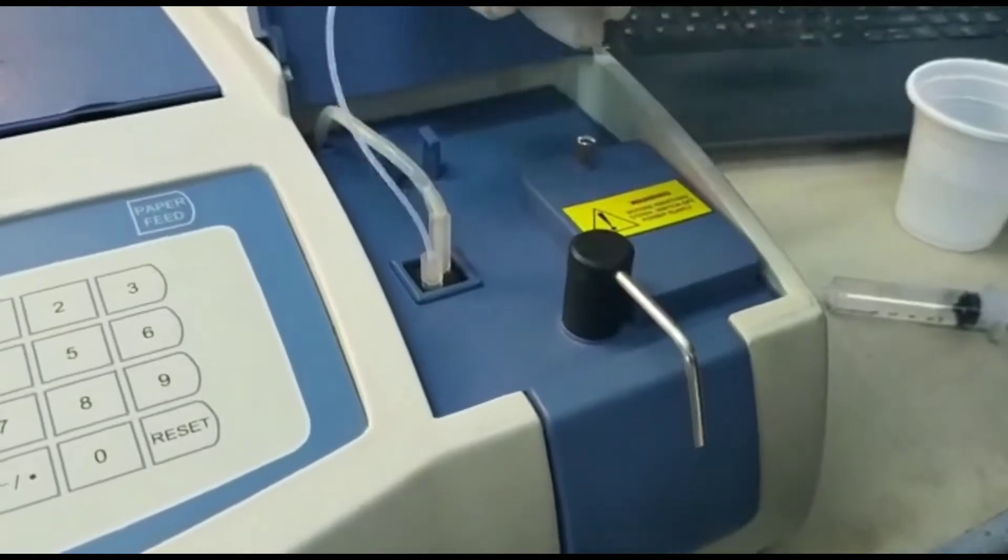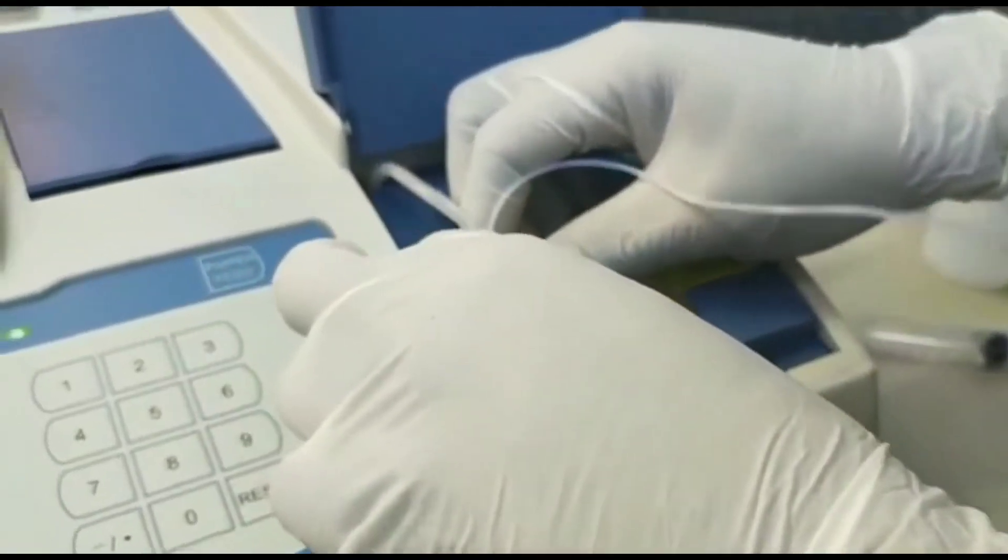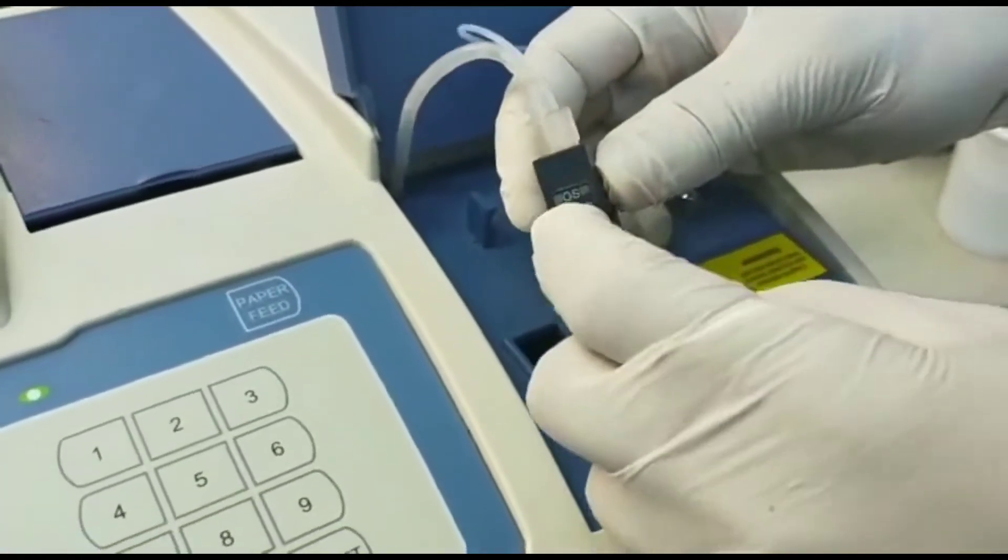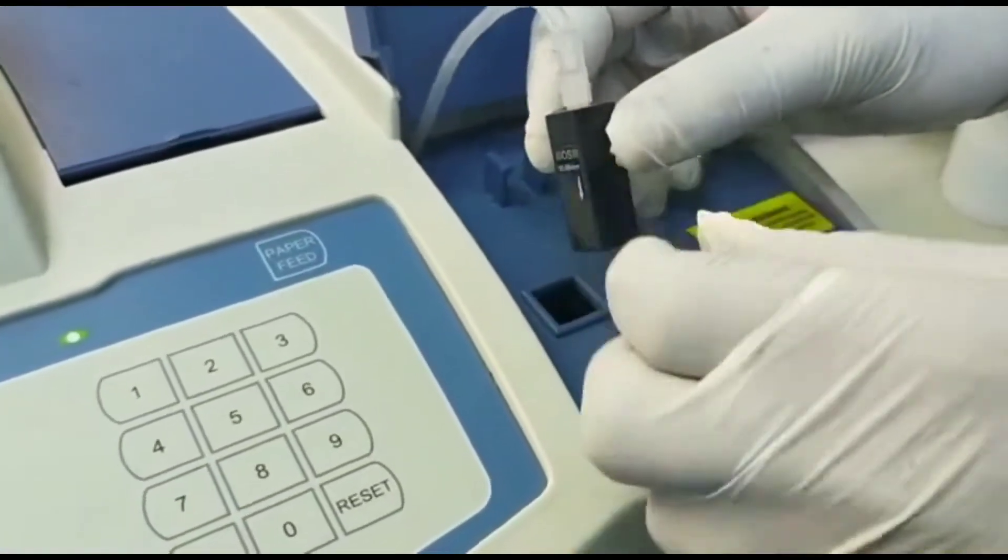remove the aspirating tube, remove the flow cell, you will see the writing is on the left hand side.